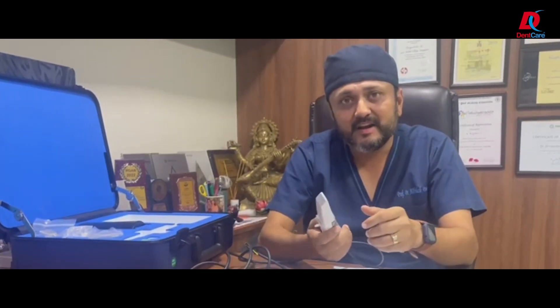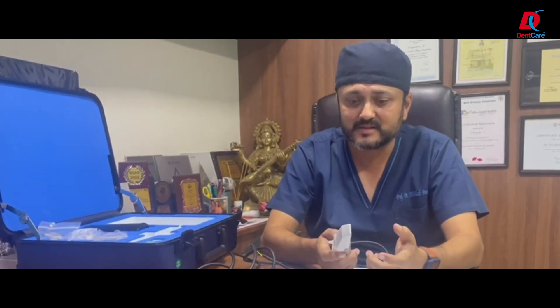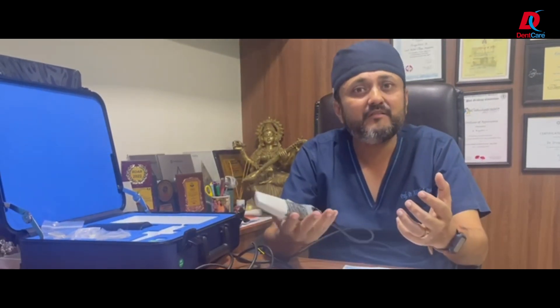More than cosmetic dentistry, I was concentrating for the last 3 to 4 years on scan bodies. These scan bodies were so difficult to scan when doing a second molar because of the axis, the scan head being bigger and heavier. Nowadays, believe it or not, you can use these scanner heads even for a second molar — not only for a crown but also for scan bodies used with dental implants. It is more user-friendly, with a smaller and lighter scanner head.